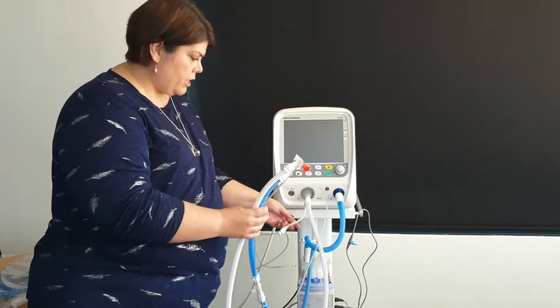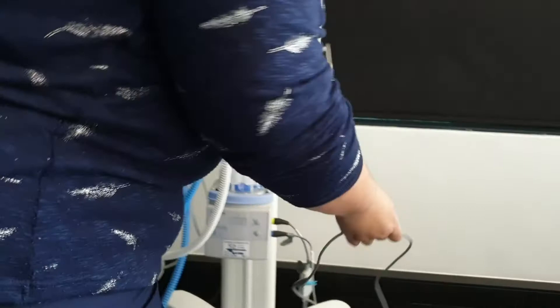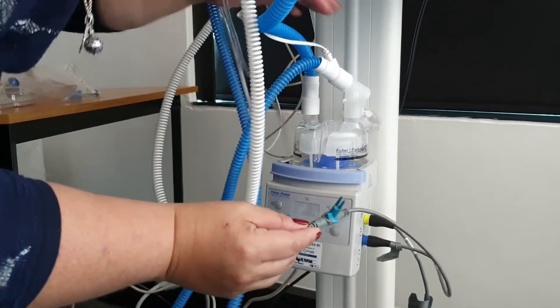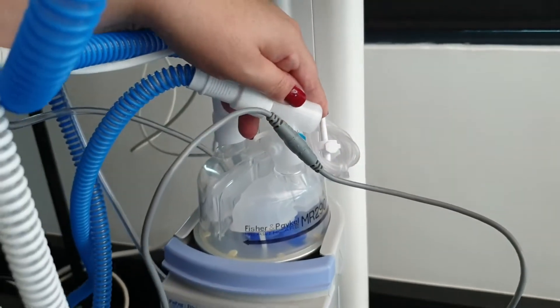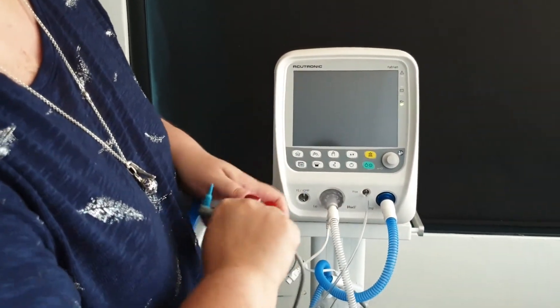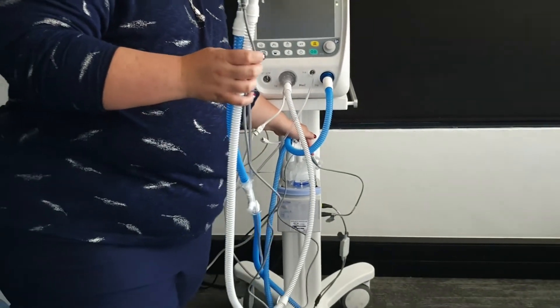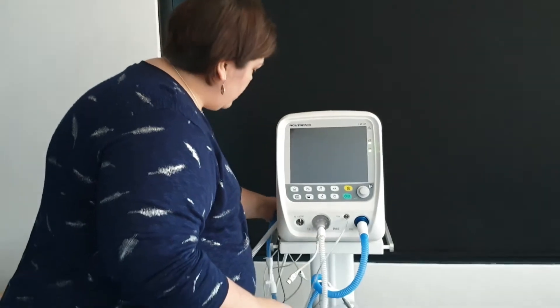Now I want to talk about the heated wires. Your heated wires come from your humidifier. First you have two pins with a little triangle that can only go in one place, and on the white tubing there is a matching little triangle hook — it can only go in one way. You then have your long line, which is your proximal heater sensor, and this needs to go closest to your patient. Once connected, it will measure both heat and flow, measuring the proximal heat that goes into your patient's ET tube.